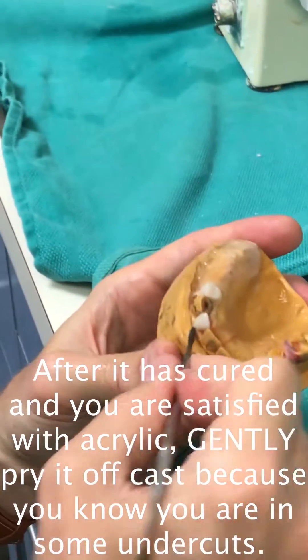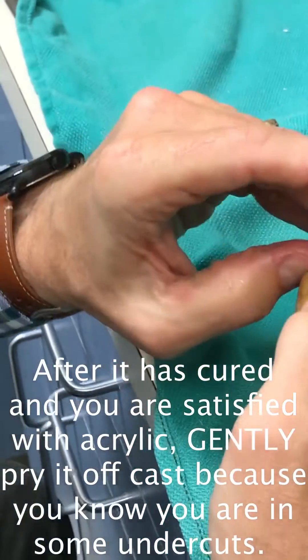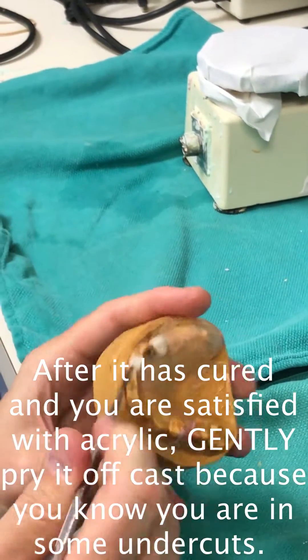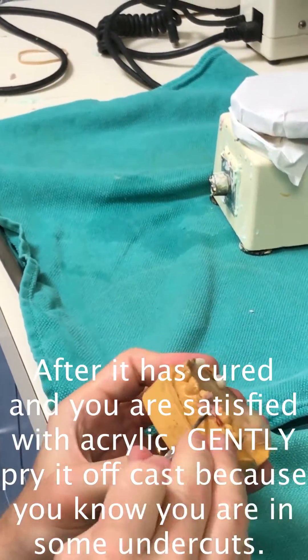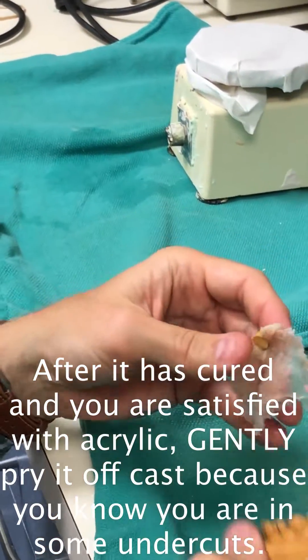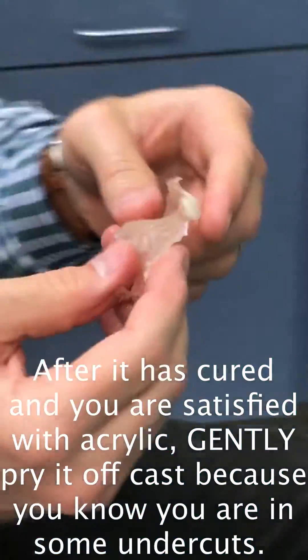That's good. Oh, that was a stone tooth — yeah, I'm sorry. You may actually be able to glue it back. Your goal is to not disturb the cast, which we did not quite achieve this time — we did disturb it, but barely. We lost one tooth. You can glue it and cast this back normal. So there's your partial.